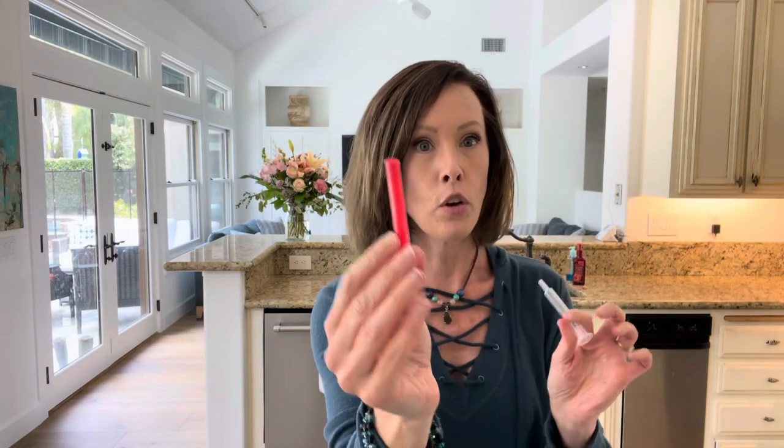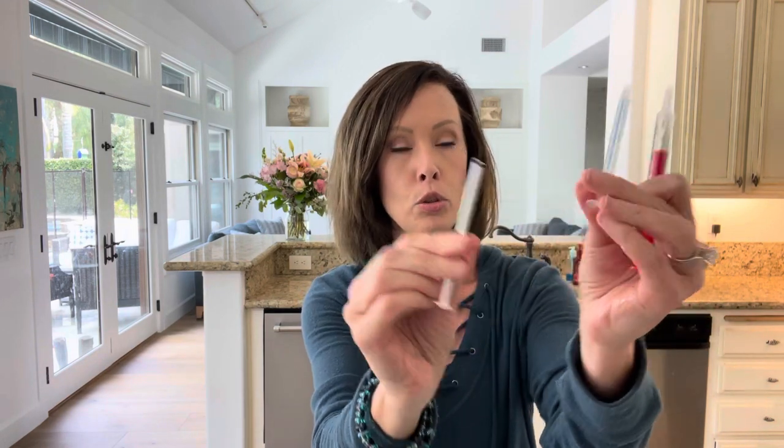The syringes I've been getting lately with his medications don't have the little rubber part — I love those. I always ask for an extra syringe when I get a medication refill. For the smaller syringes with a rubber stopper, same thing — a little olive oil helps, and I use a little straw bottle brush to clean them out afterwards.